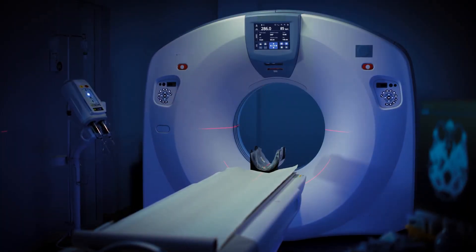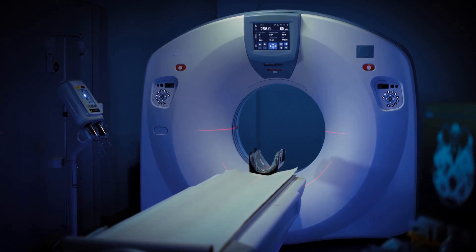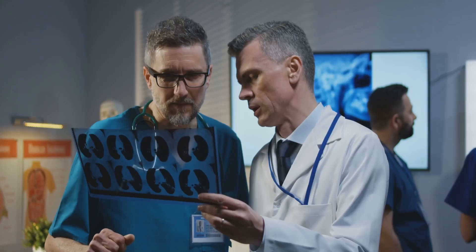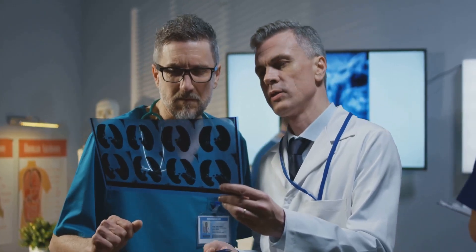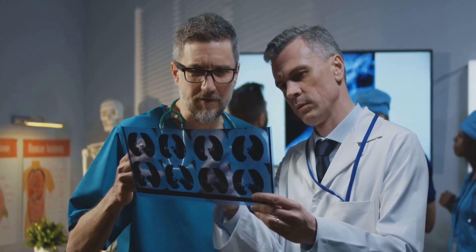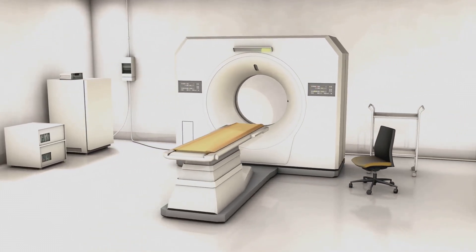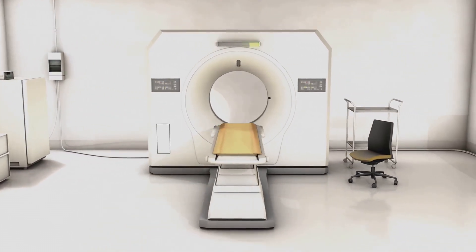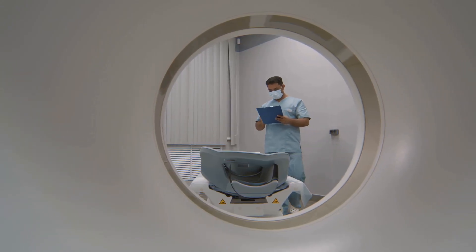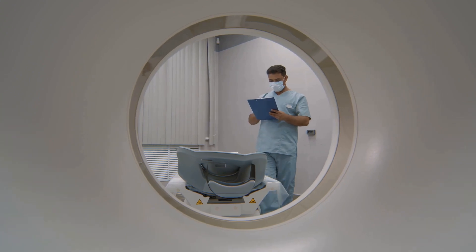Computed tomography, or CT scanners, are indispensable tools in modern healthcare. They provide detailed cross-sectional images of the inside of the body, enabling physicians to diagnose a wide range of conditions. From detecting tumours and internal bleeding to guiding surgical procedures, CT scanners play a crucial role in patient care. Maintaining these sophisticated machines is paramount to ensure accurate diagnoses and timely treatment.